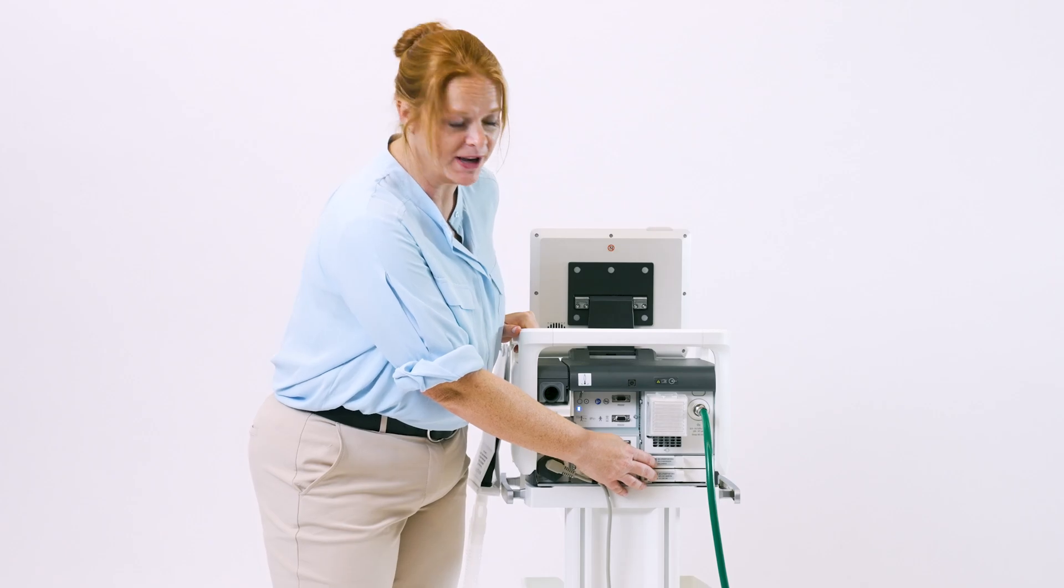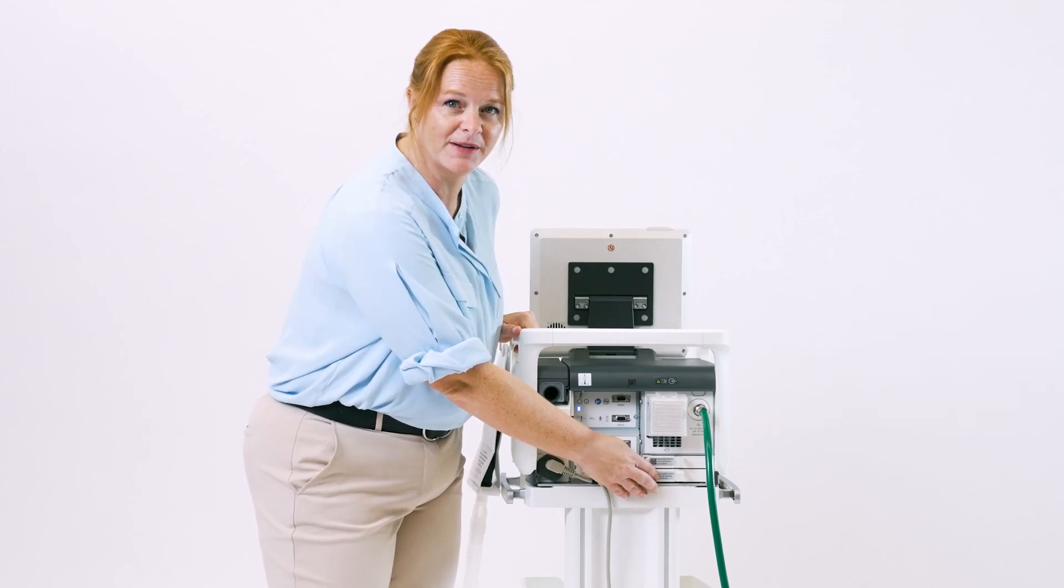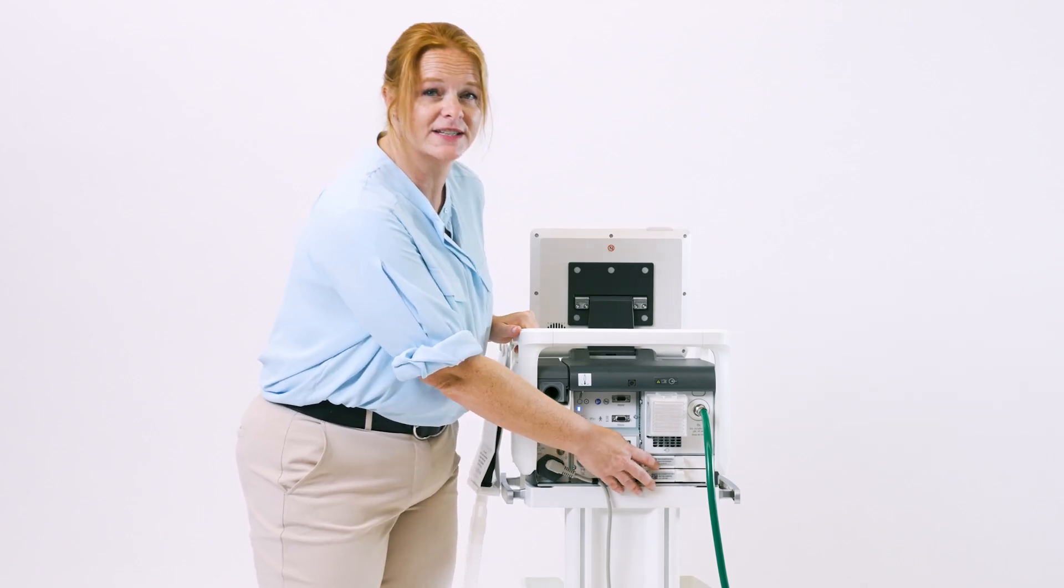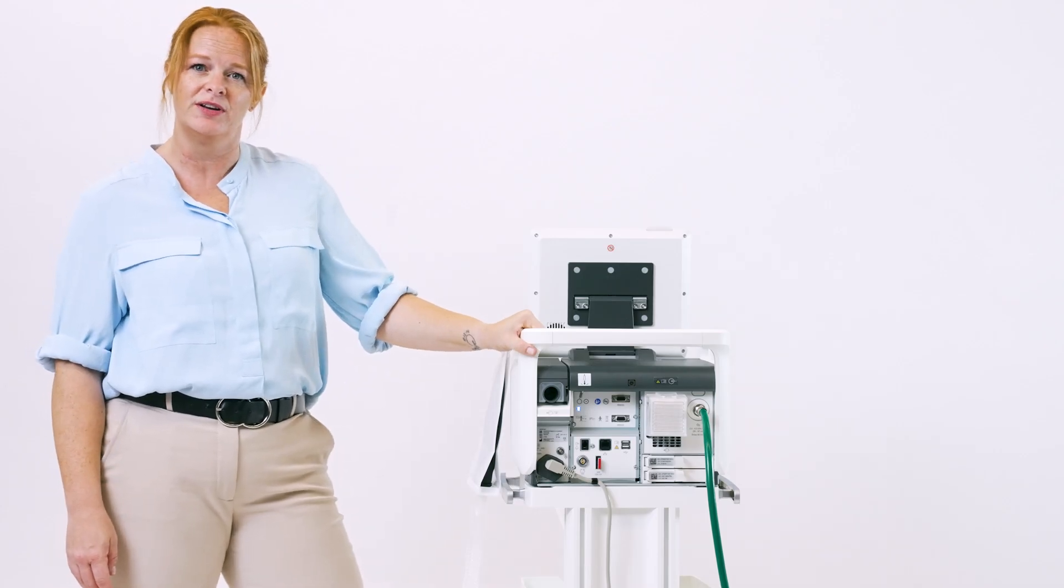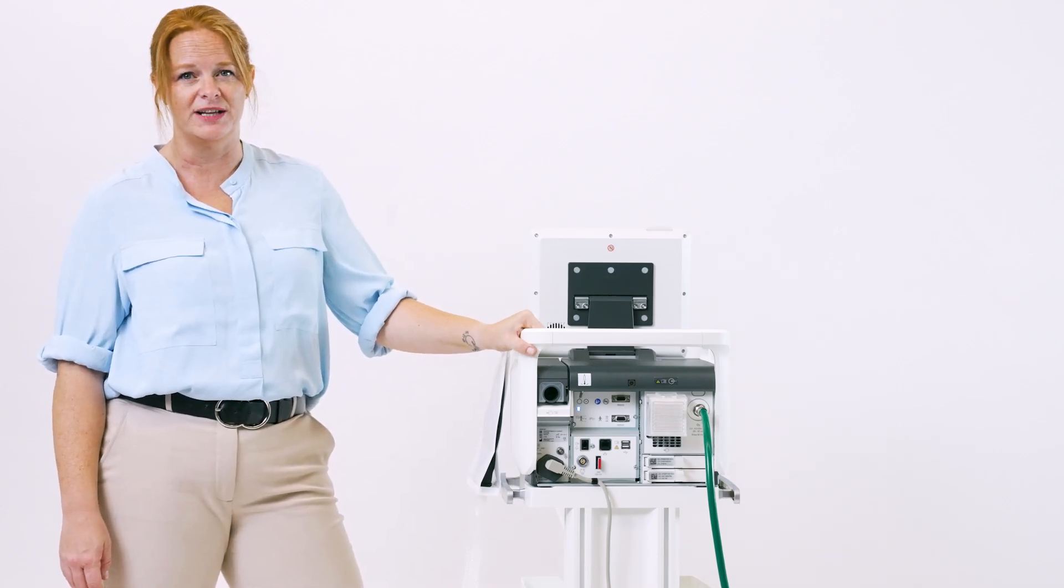Located down here are your two battery packs. The bottom one needs to be plugged in at all times and the second one is interchangeable to be used on transport, each lasting 120 minutes apiece.